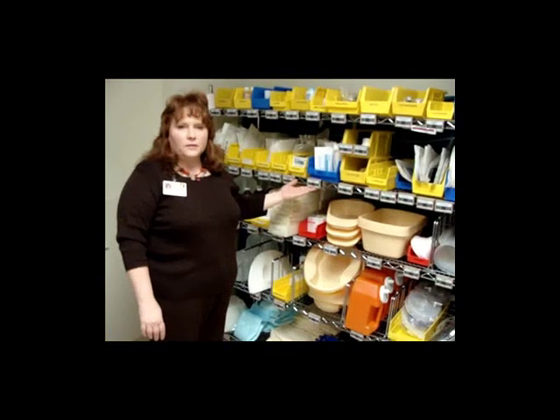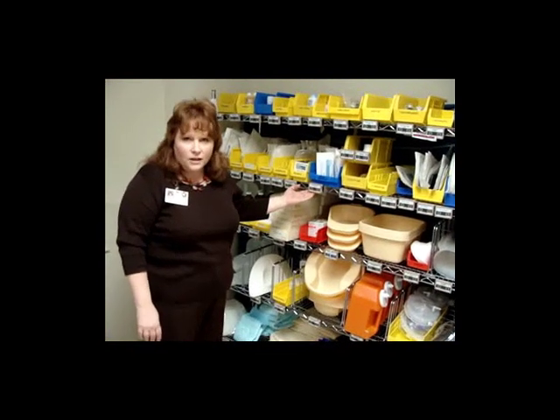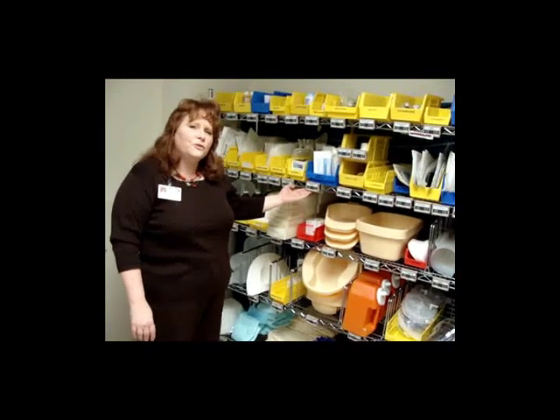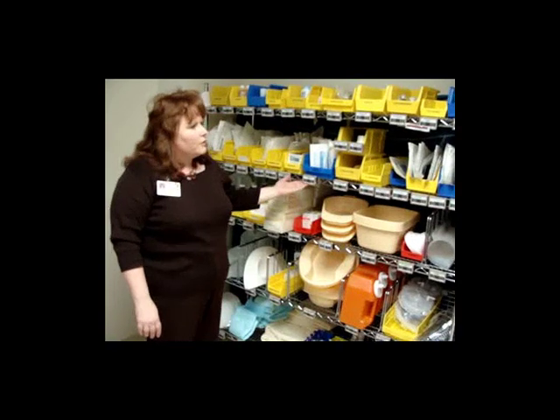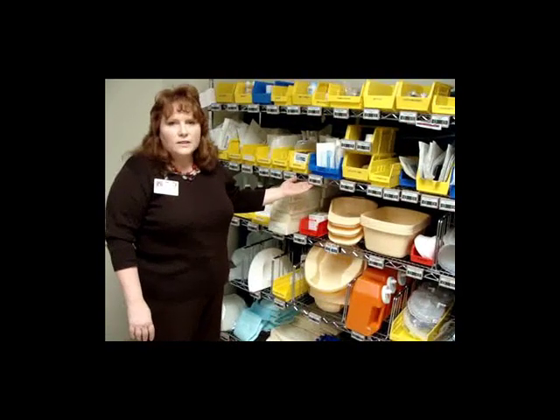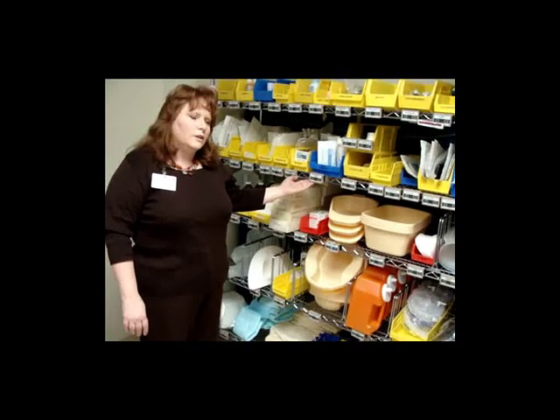This is another part of Pyxis that we use on open shelves. These are for items that are traditionally floor stock, probably fast movers or things you use a lot of on the unit but don't cost a lot. The great thing about this technology is it allows us, without you having to log in, for us to keep track of what you're using on the unit and to be alerted if you're running low.